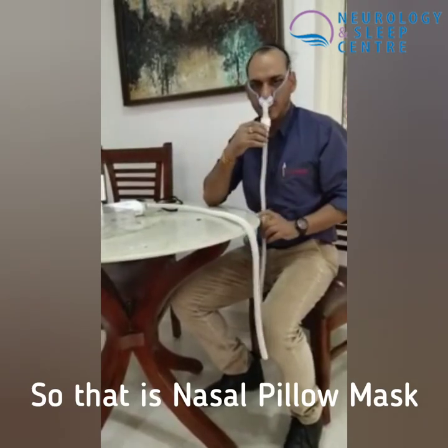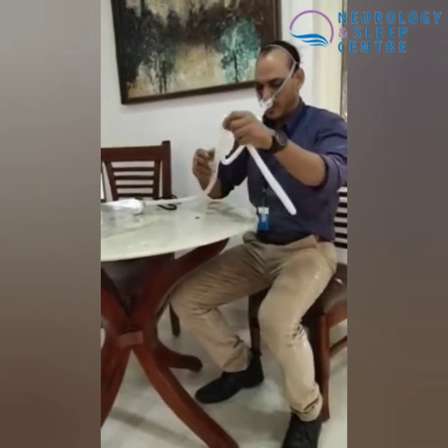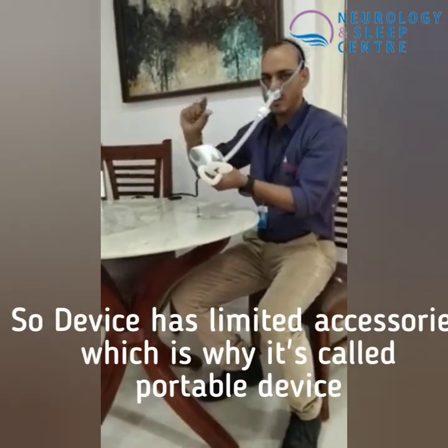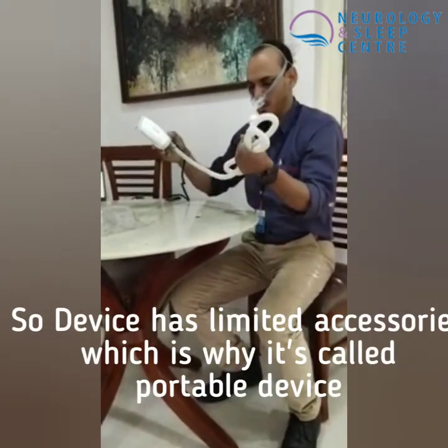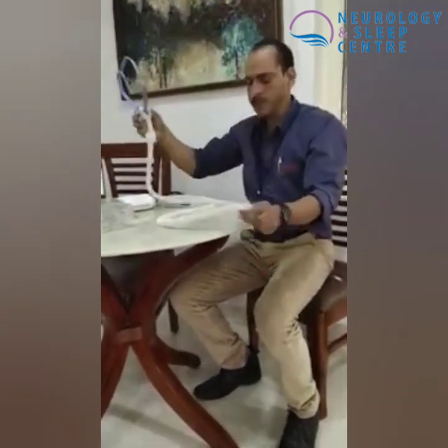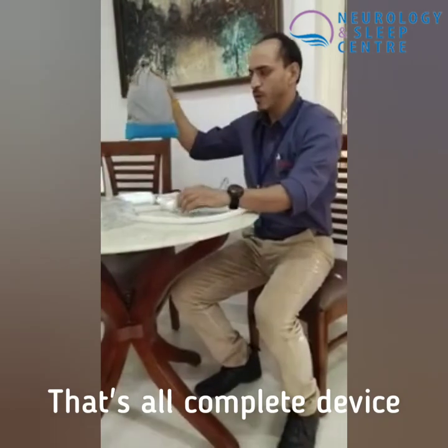This is a nasal pillow mask. This is basically compact enough to fit in your luggage. This is the little charger. That's it — this is the full complete pouch.